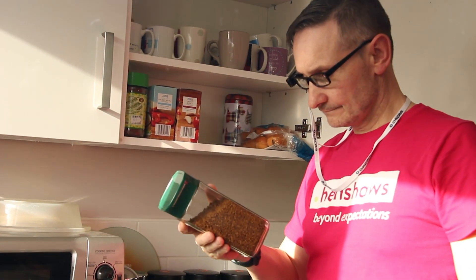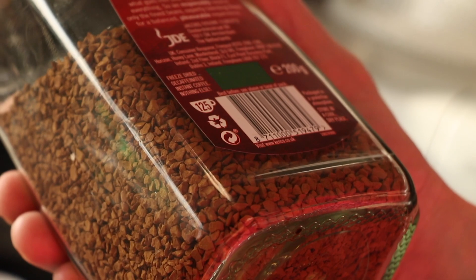There's also product recognition. When you place your finger on the OrCam to take an image, it works out whether it's a human or a product — for example, 'Instant coffee 200g.' Sometimes a product is difficult to recognise, so OrCam also reads barcodes too for unusual items. Another favourite feature is the watch gesture — it reads the gesture of your wrist to tell you the time and date. You don't even have to have a watch on; it's not reading your watch, just the gesture.